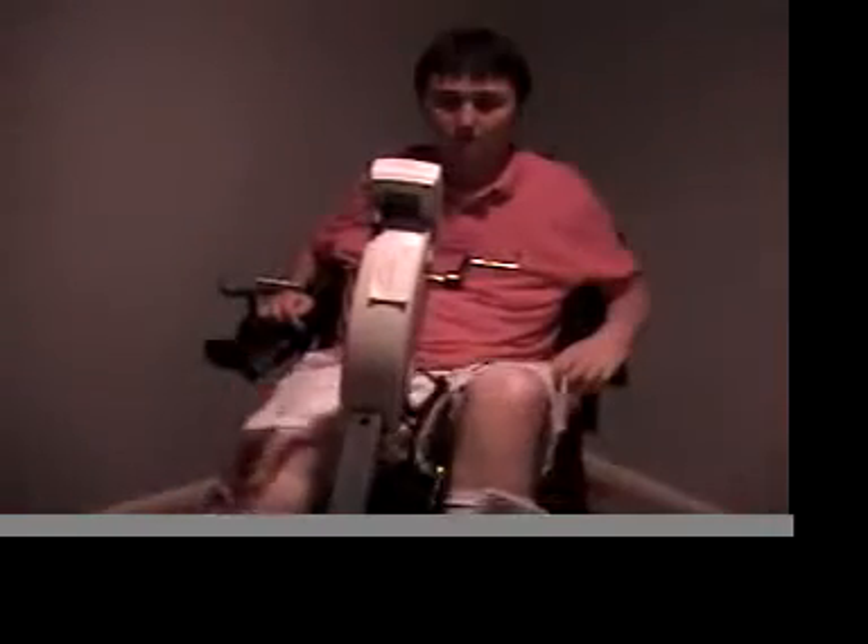The thing I like most about the bike is that it gives me a cardiovascular workout that I otherwise would not be able to get, because it truly is able to use your own body's muscles to give you an exercise. Not only does it give your lower body a workout, it creates neurological signals below your level of injury that travel up your spinal cord through your level of injury to your brain, saying that you are moving your legs in this pattern. At the same time, your brain is sending signals downwards. So it's a great restorative therapy to allow you to re-educate your damaged spinal cord.